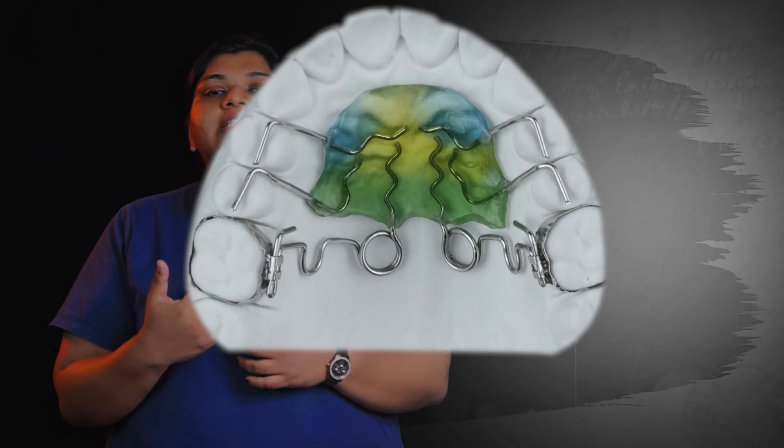Coming to pendulum appliance, pendulum appliance is an orthodontic appliance used to distalize molars in class 2 malocclusion cases.